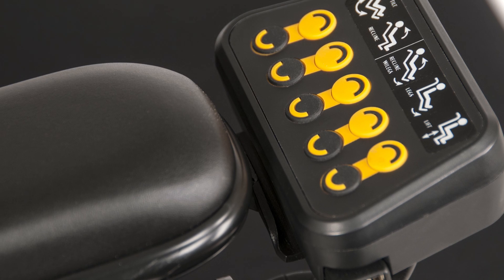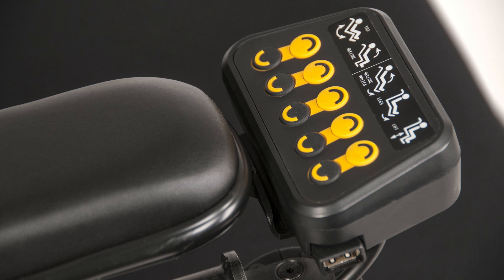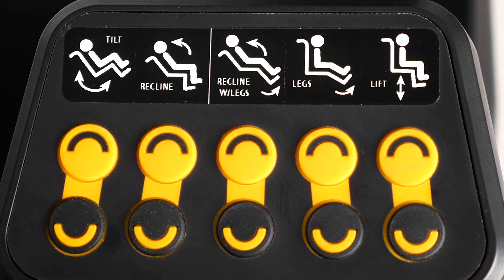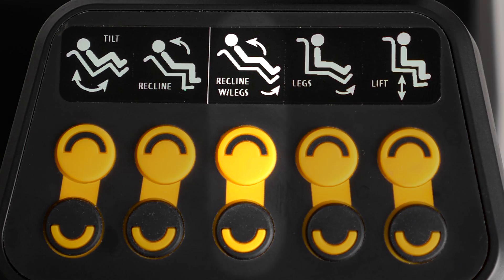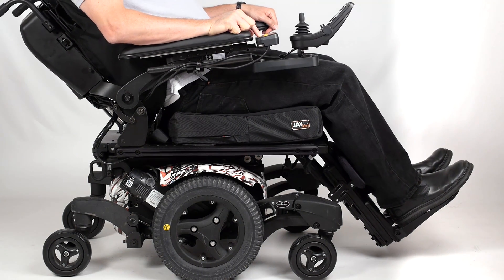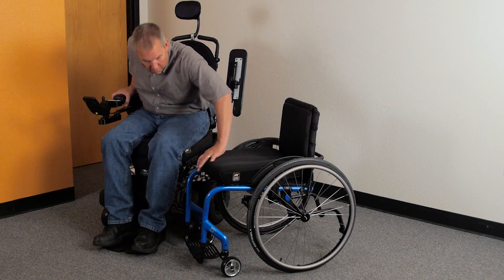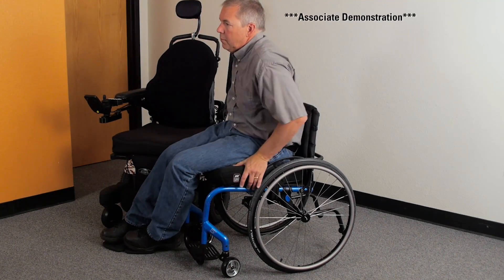The Control-5 box, which is available in a button version or a toggle switch version, controls these functions, but it also has an additional button that can control recline with legs or an optional Power Leg Rest Extension — a helpful command for those who perform transfers.